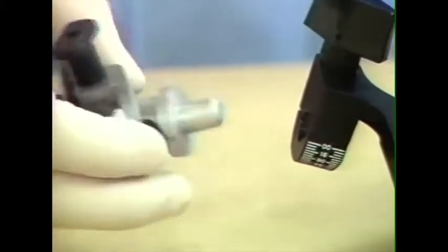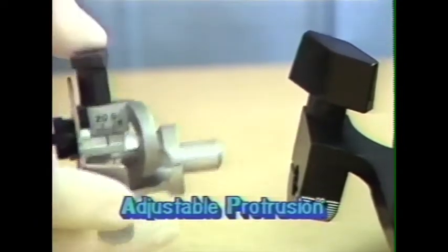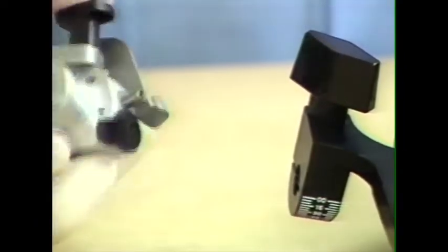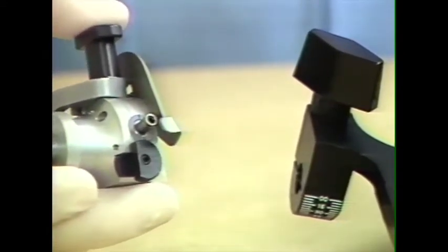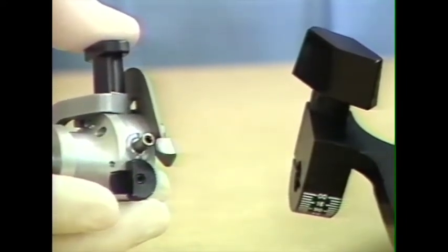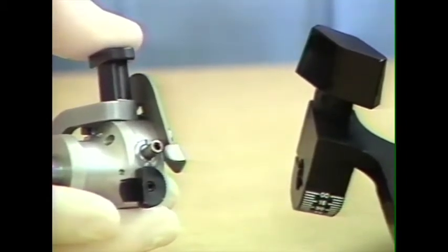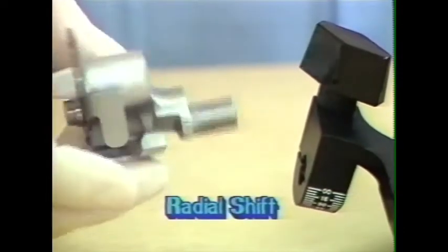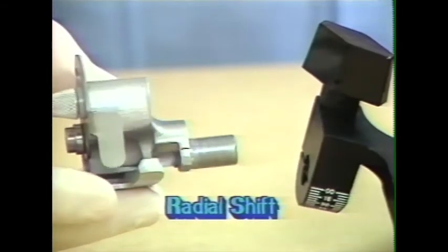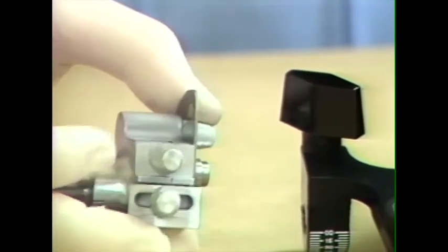The third type is the adjustable Bennett shift with the anterior adjustment or the protrusive adjustment. With an Allen wrench, this screw here can be adjusted to allow a given degree of protrusive orientation to the mandibular movement. And the fourth type is the radial shift, which incorporates a curved path of movement with an adjustable immediate side shift as well as an adjustable Bennett angle.